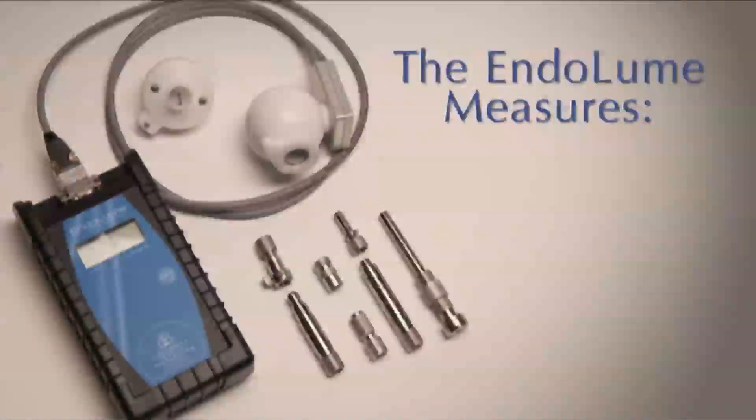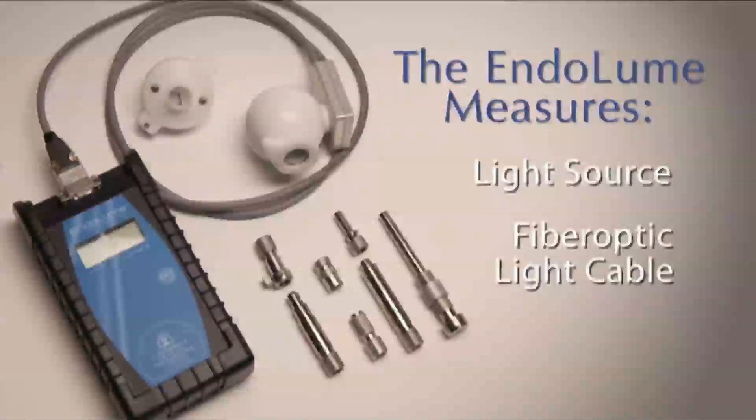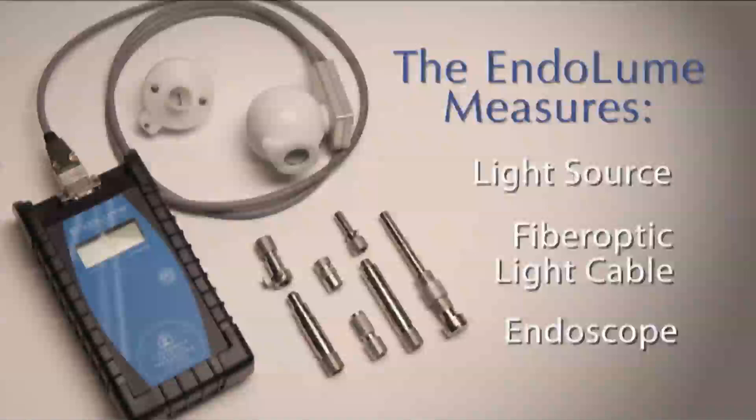The Endolume directly measures the luminous intensity of the endoscopic light source, fiber-optic light cable, and endoscope.